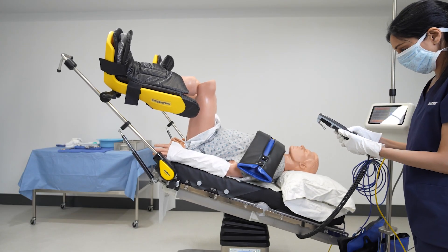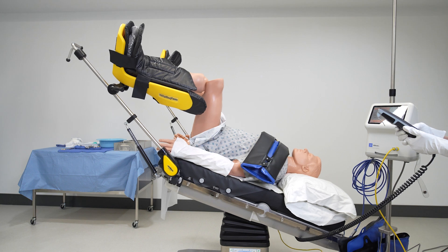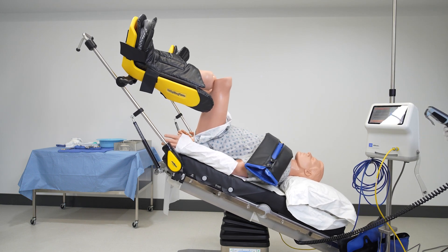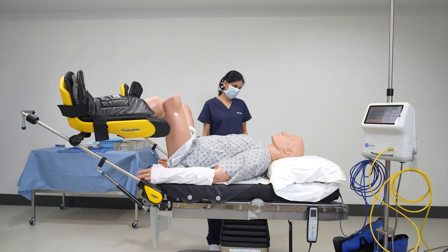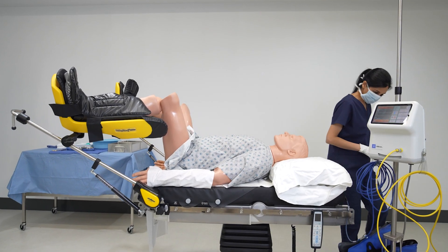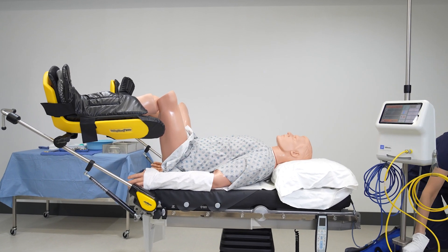Waffle grip is a steep Trendelenburg positioner designed to be used with the Baxter patient warming system. The waffle grip material is a high-friction surface that also provides evenly distributed mechanical grip to hold the patient in Trendelenburg while allowing the warmth from the pad to efficiently reach the patient.